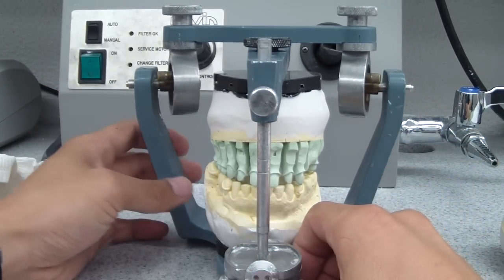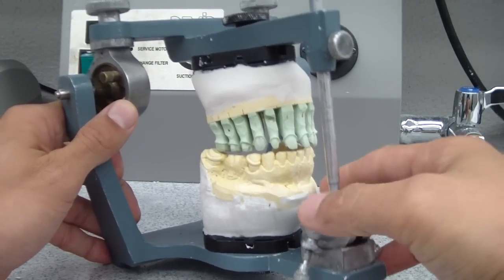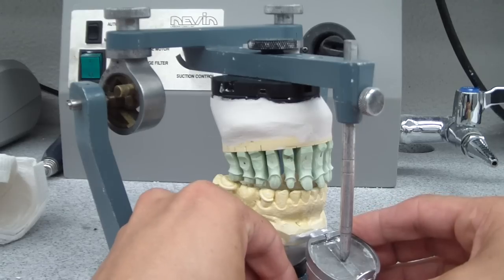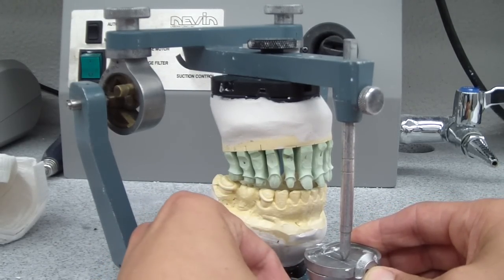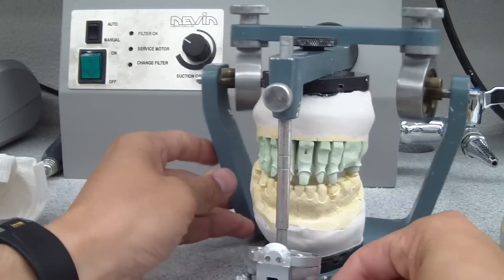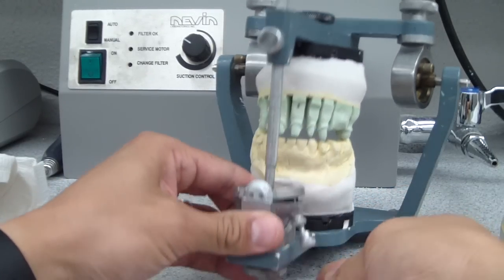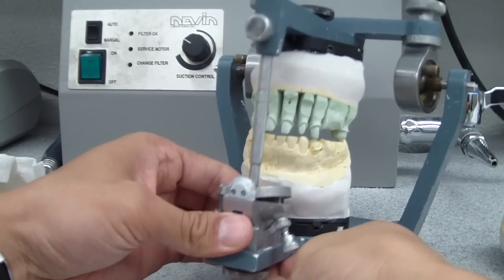There's a number of ways to do this. You can either design it with the incisal guide table yourself or one that comes with the articulator — so you just angle this up. We're going to stop right there because it's old and jammed, and the reason why I'm using this is because not always do we have $2,000 to $3,000 articulators or do you have an articulator at all. So it's good to learn how to work around these things.